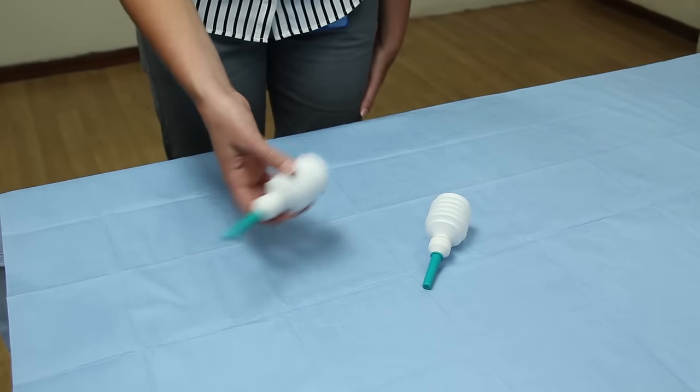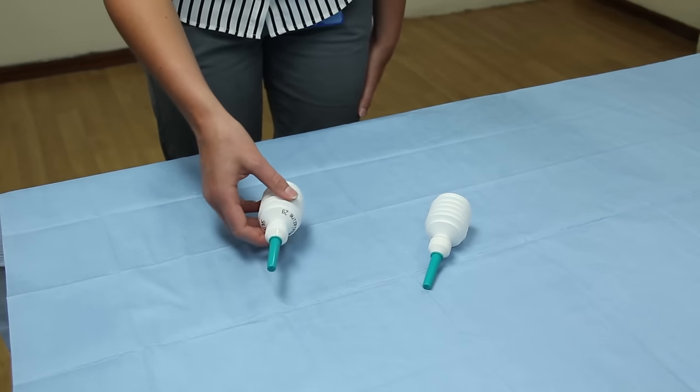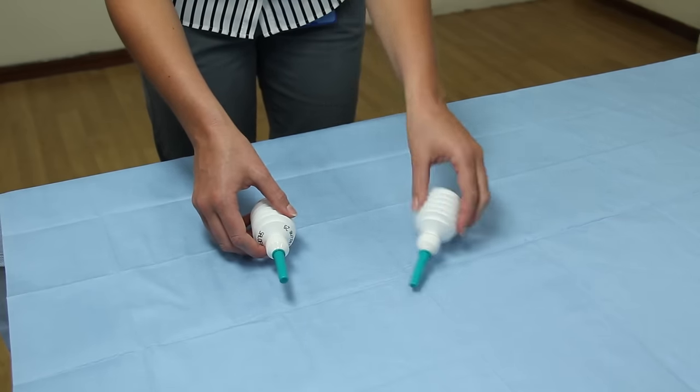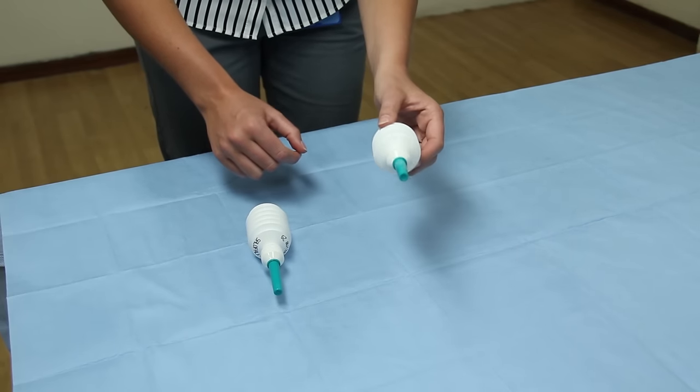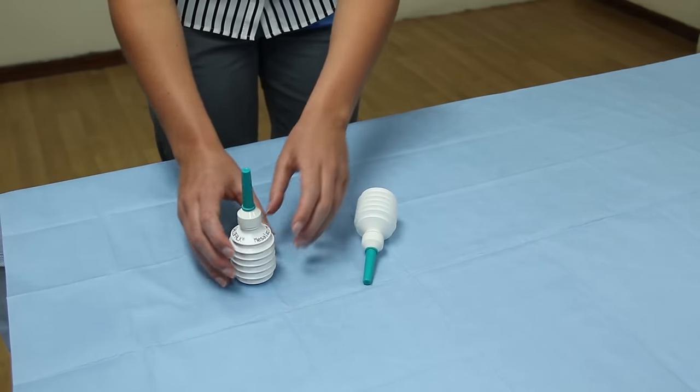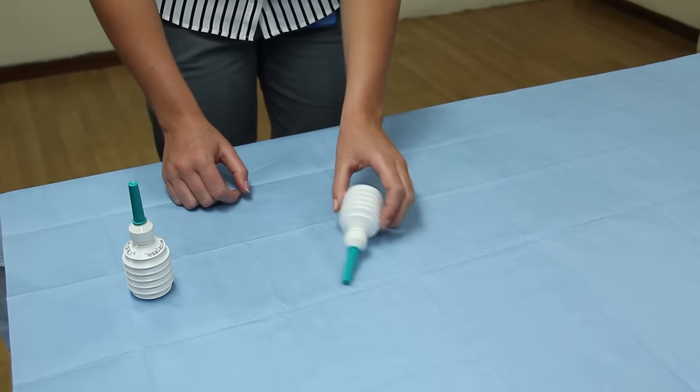Now this one is full with mesalazine and it's got the nozzle on like this one. But just for the purpose of this video, I'm going to use an empty one. So I'm going to move this one to one side.